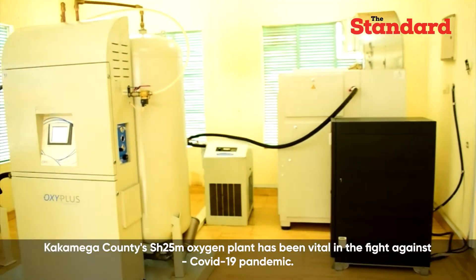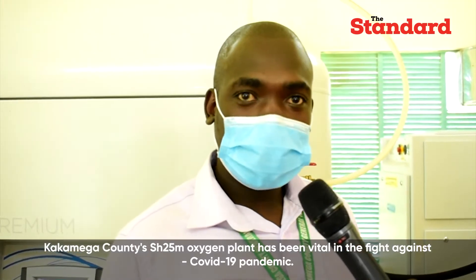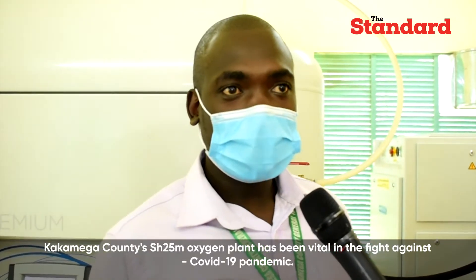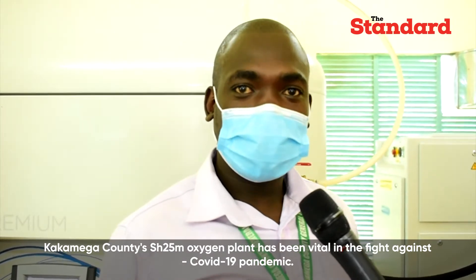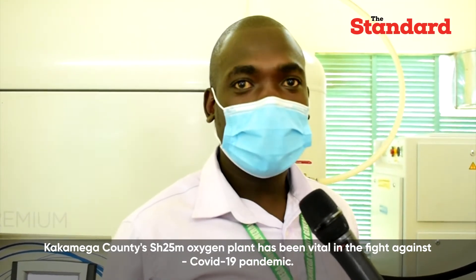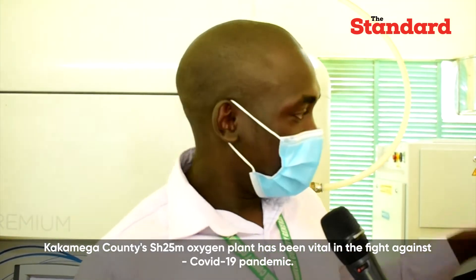This is the oxygen generating plant and it's the main generating plant serving the hospital. The main purpose is to generate medical oxygen to be used on patients.